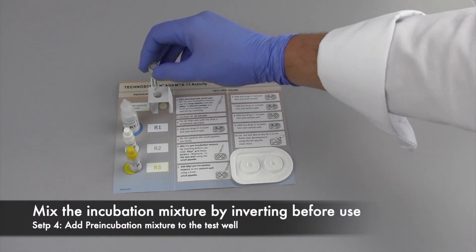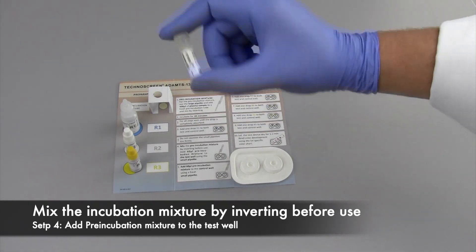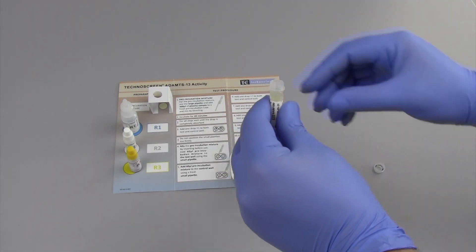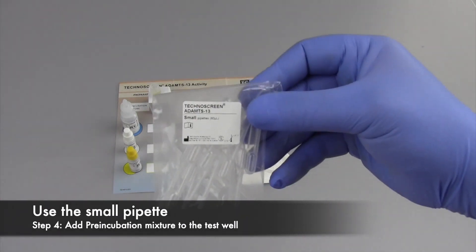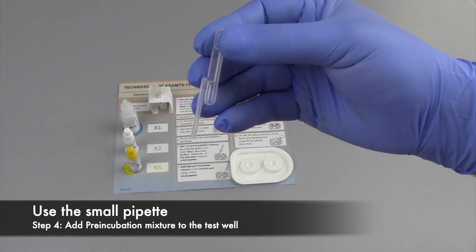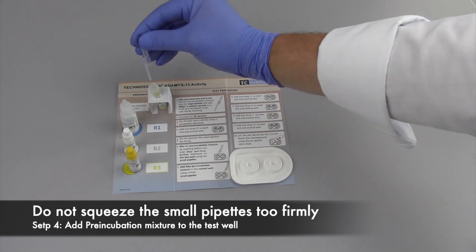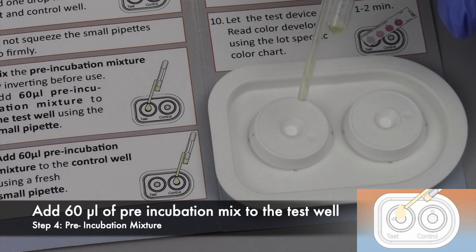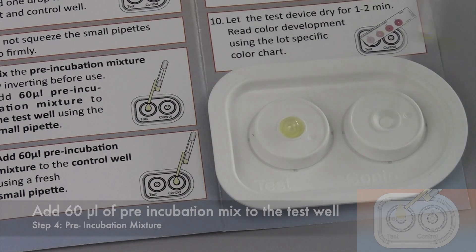Before using the incubation mixture, please mix thoroughly by inverting. With step 4, the pre-incubation mixture is added to the test well. Use a small pipette for this step. Take caution not to squeeze the pipette too firmly. Add 60 microliters of the pre-incubation mixture to the test well.